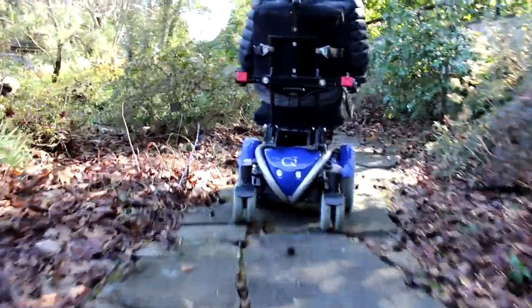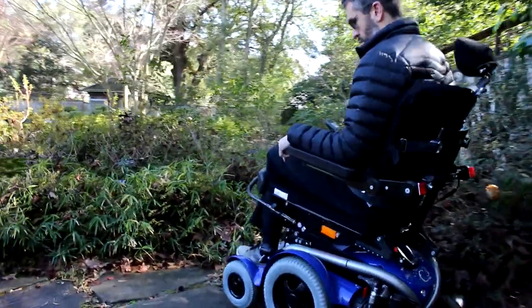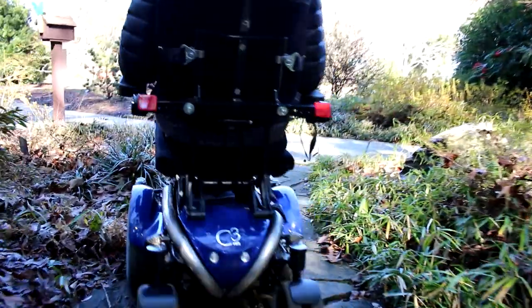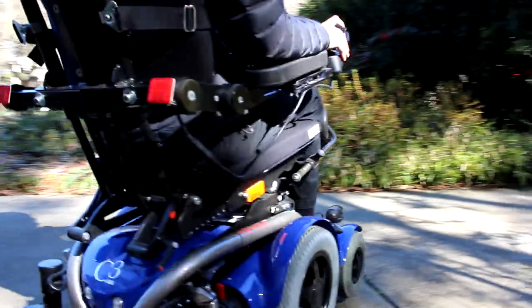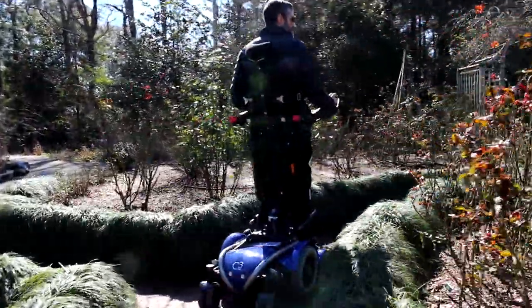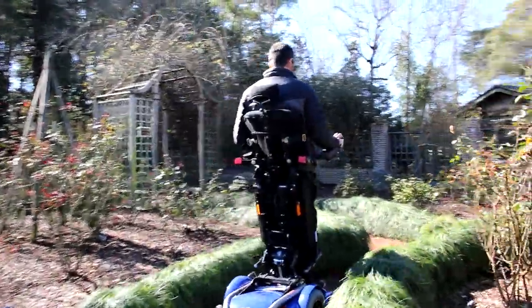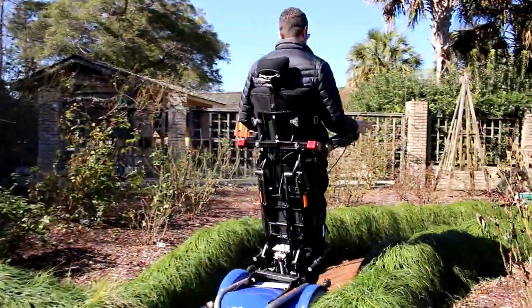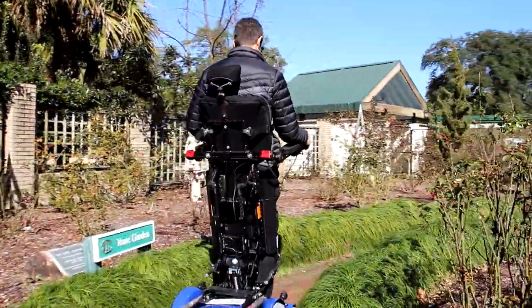Another really strong point of this chair is cost. The biggest obstacle to getting a standing wheelchair is the cost, and you can get into one of these chairs at a much lower cost — primarily because you don't need all the other powered seating functions that some other manufacturers require. With this chair, you can just have a seating position and pay for the standing. With other companies, you need power tilt, power recline, power legs, and a power seat elevator. With this chair, you don't need any of it.